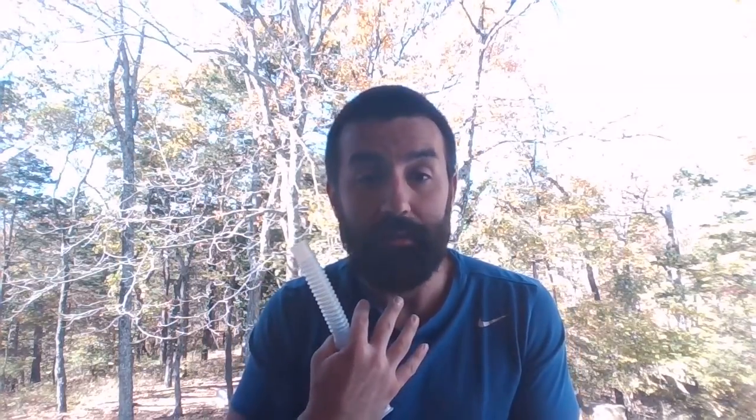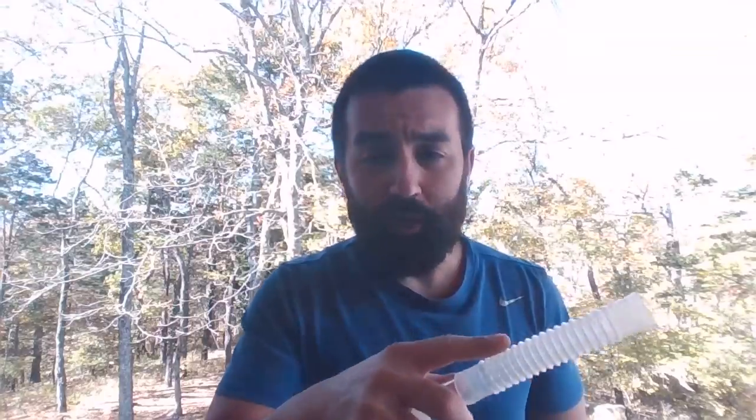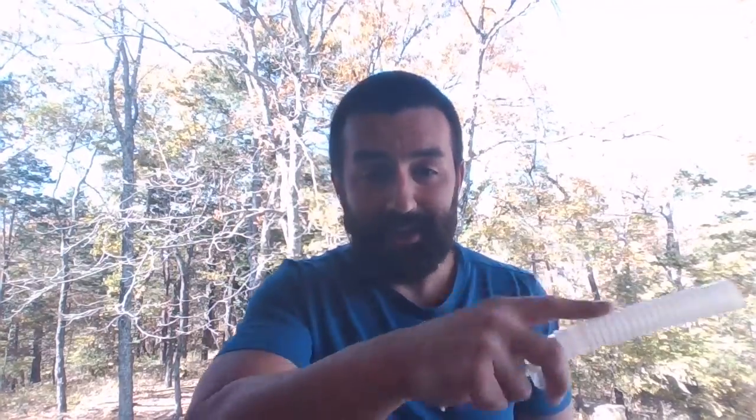So if I'm trying to target somebody's upper airway, like for racemic or something, I'll usually run on the lower side of that. But for regular small volume nebulization, for targeting lower airways, I'll try and target like 8 liters a minute. Some of these have a lot of back pressure once again, so if you can't get there, that's totally fine. You're going to see whatever's on that flow meter. All of our flow meters in standard practice today are back pressure compensated. So you might be trying to set it at 8, and it's going to show you exactly what's going through there with these modern flow meters.